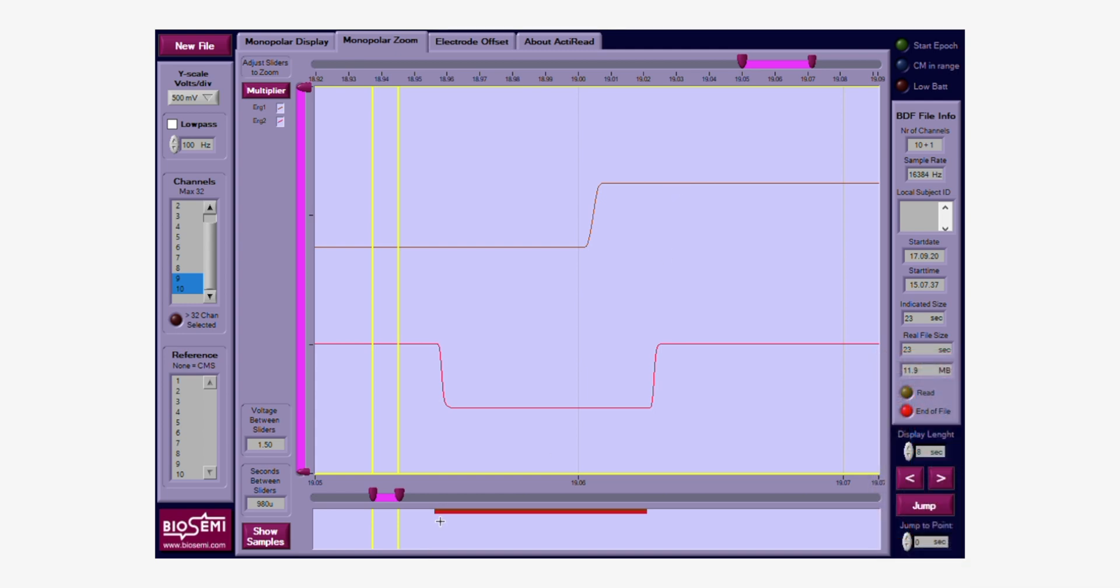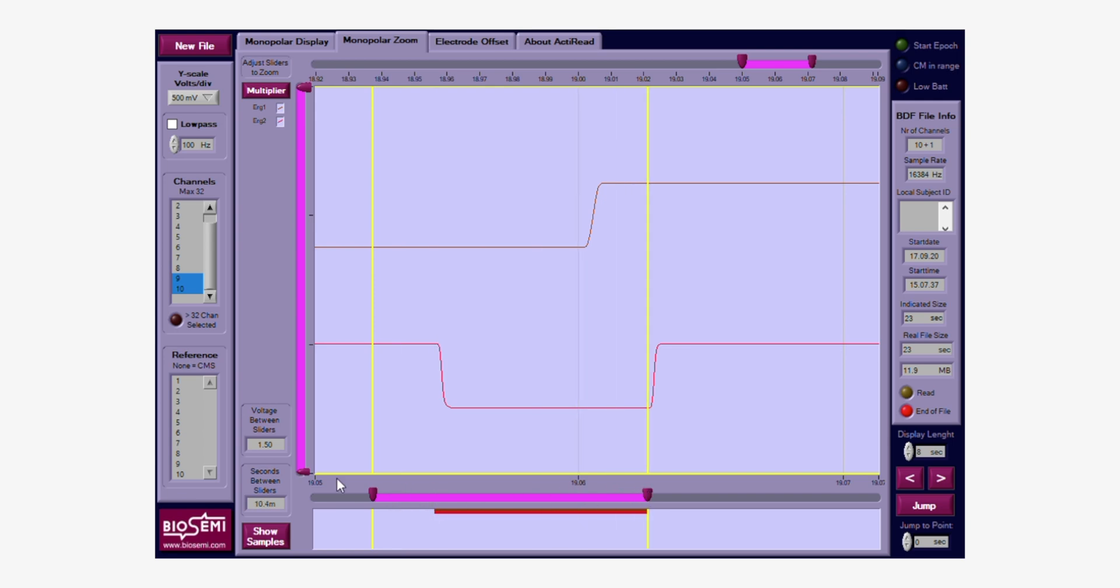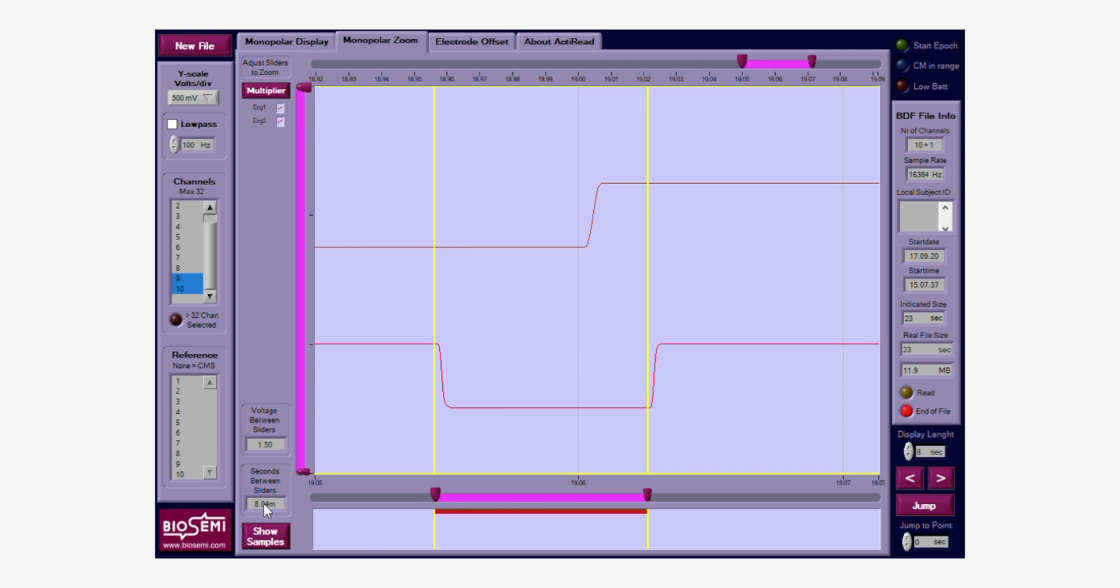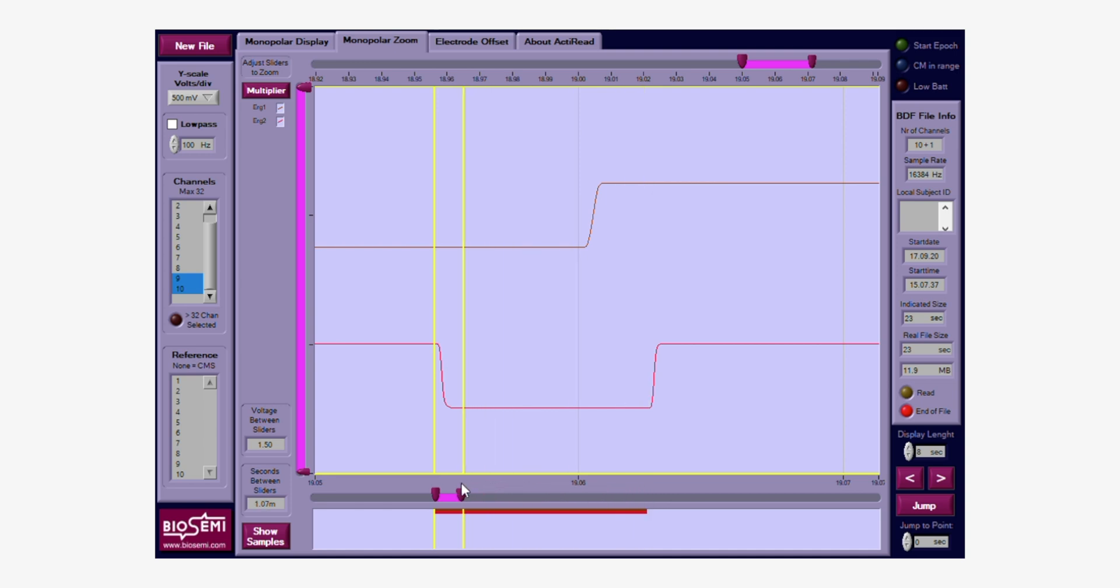We'll see the trigger on the bottom. Remember this particular point in time is zero—from there we will measure everything. So we have two levers here. We can actually first of all see how long was the actual presented trigger. That was 8 milliseconds. This is what our trigger box has actually done. We can change that but this is how the default is set up. So now we will move this particular lever to our actual incoming trigger via ERG.